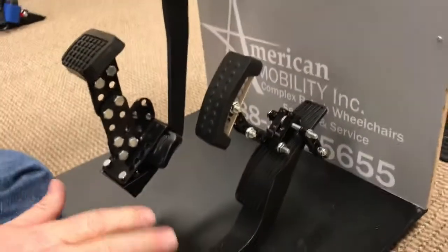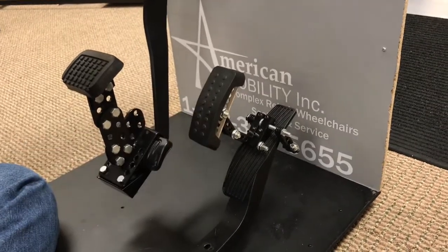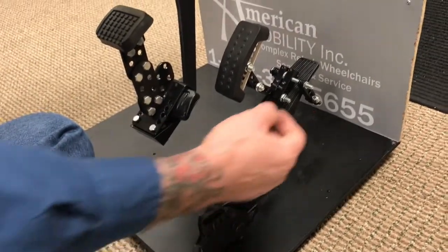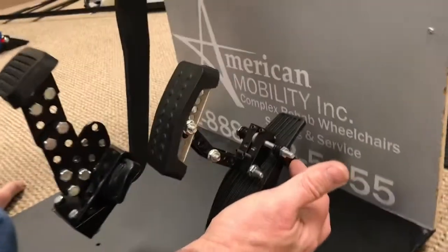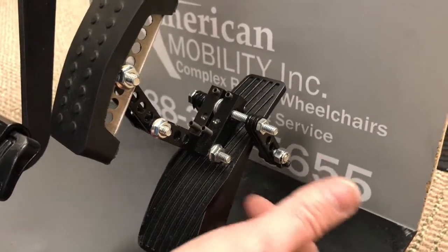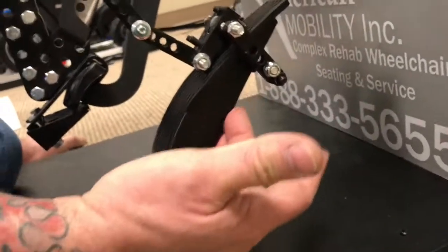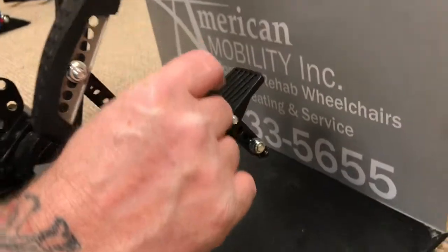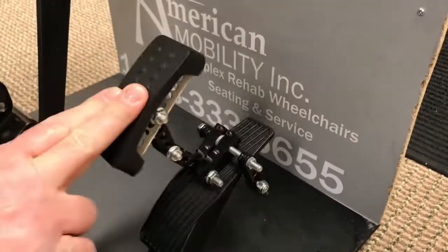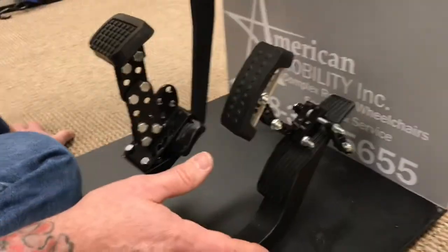As you can see when you get them on there — I mean, you can take your time and do it when you're doing it on your own stuff — but the point is you can put them on anything. To make this bracket fit around this extra-large gas pedal, which is the worst one you're going to have problems with because it's so wide in the back — it's really not that big of a deal. Cinching these down and tightening everything up, you begin to see this thing is rock solid.